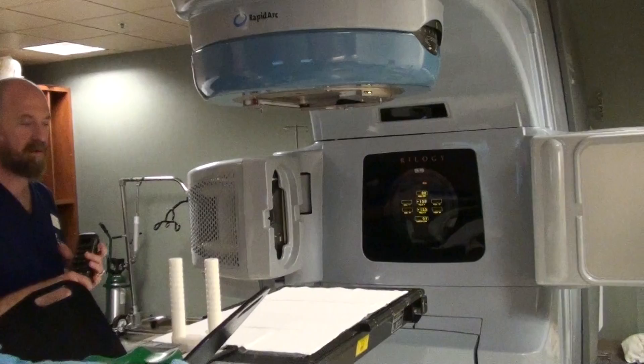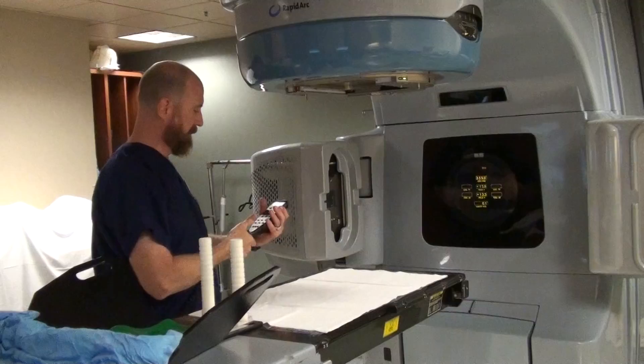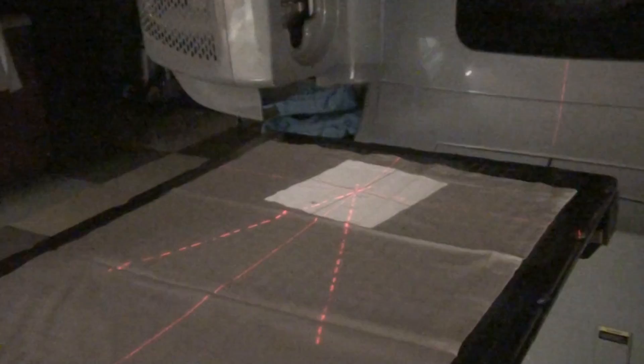When you hear collimator, you're actually talking about two separate pieces of equipment. Normally when you're talking about collimator rotation, that's this large piece right here that actually rotates the beam itself. You can see that the square itself is moving relative to the lasers.